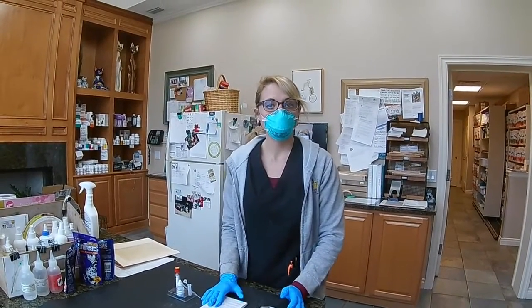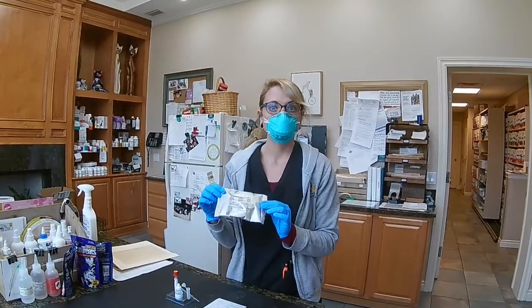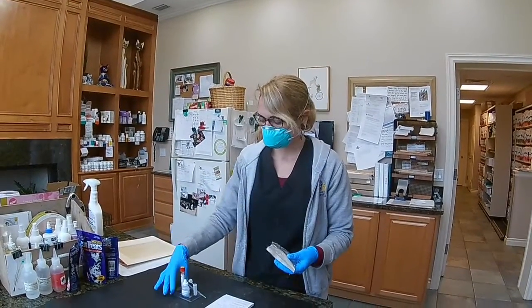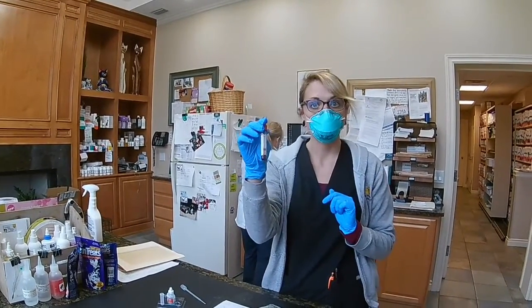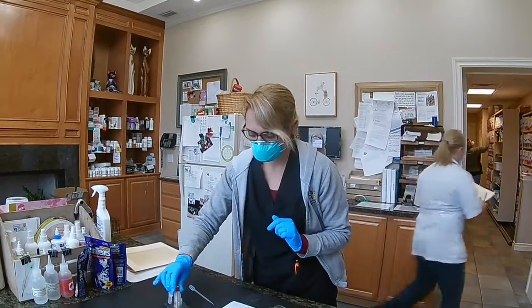In this portion of my video, I'm going to be doing a serology test. For that, I'm going to be doing a CPL, or canine pancreatic lipase, test. And I have it on my patient bell here. I do want to note that the serum that we have collected from here is a little icteric in color. So we're going to get this started here.